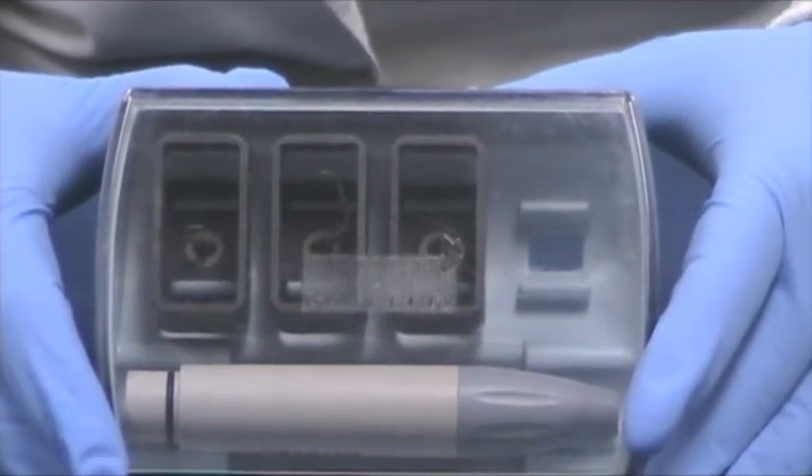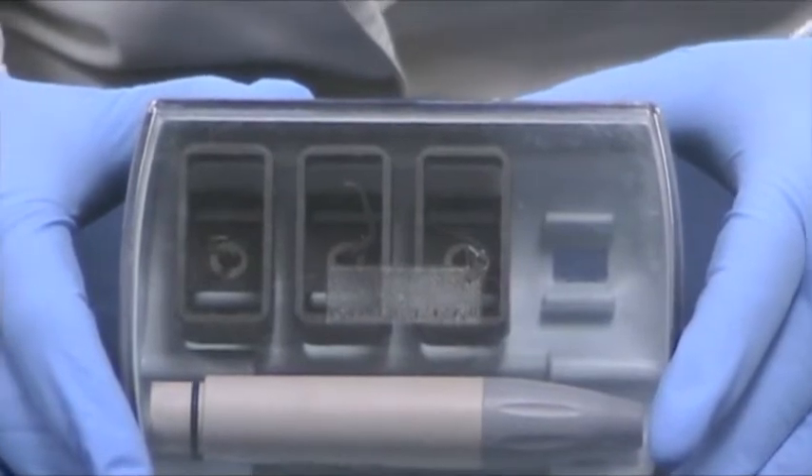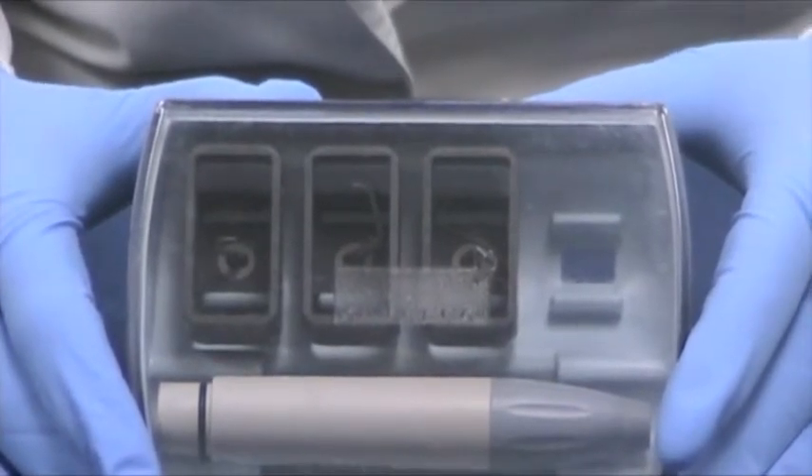And they're shaped like the metal counterparts: the H3, the H4L, and the H4R.